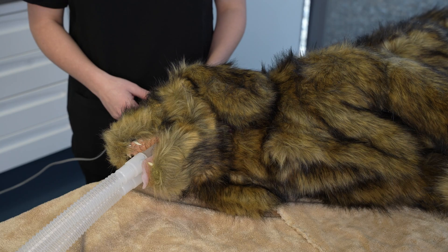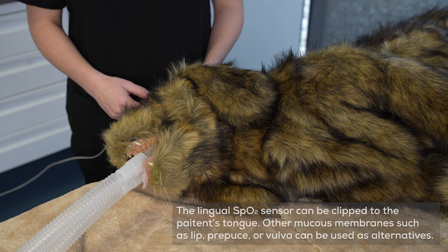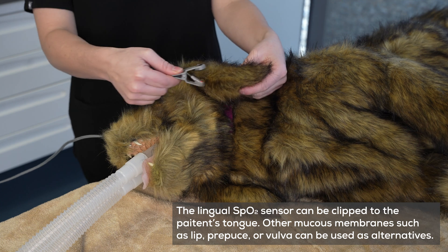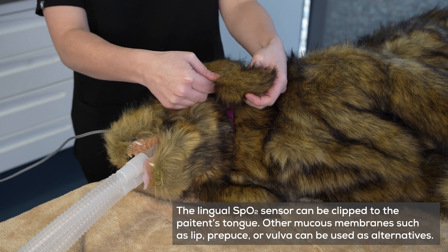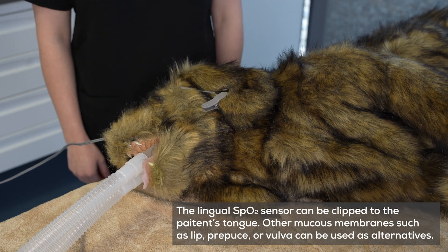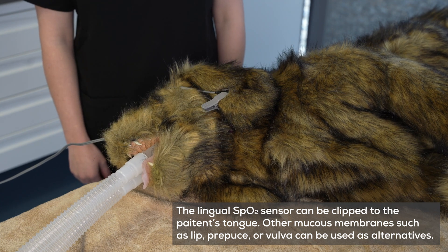To connect the SpO2 sensor to the patient, clip the sensor to the patient's tongue, lip, toe, ear, prepuce, or vulva.